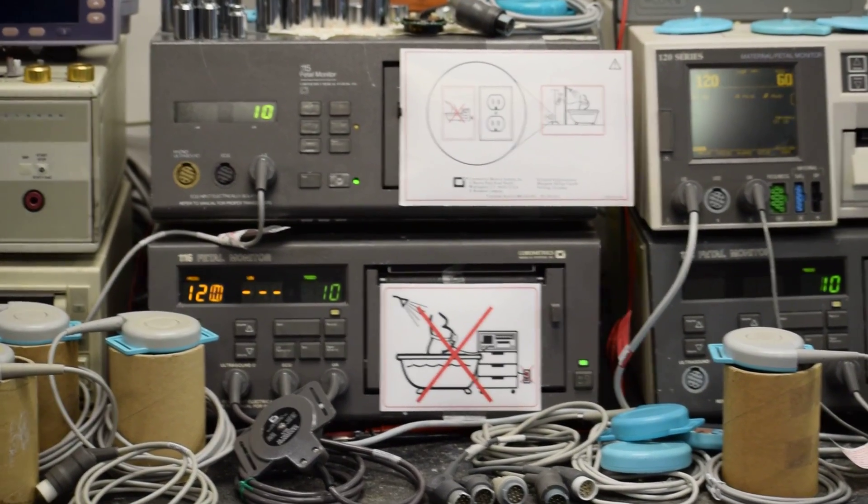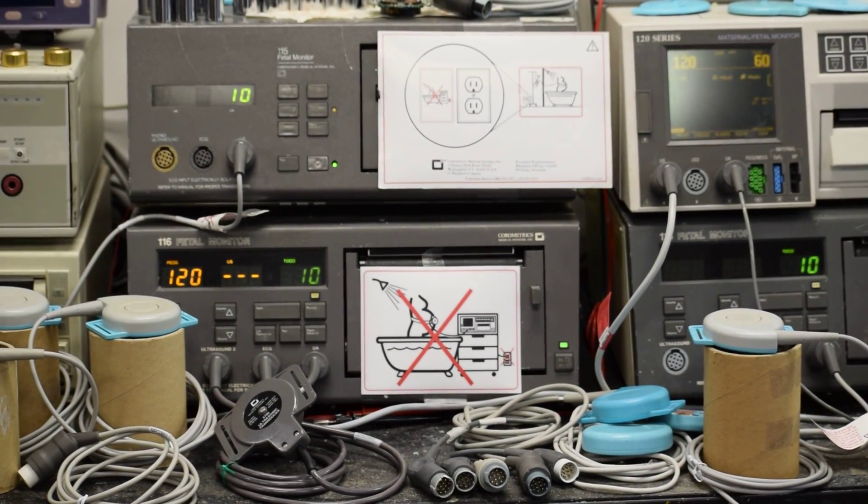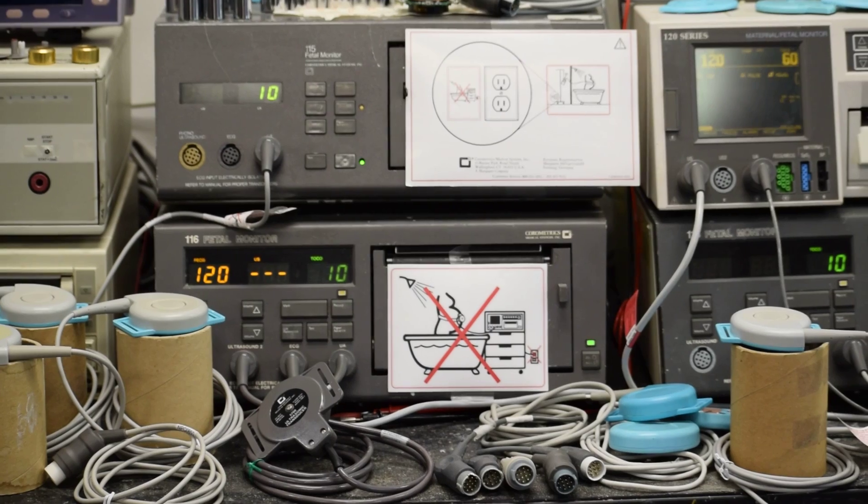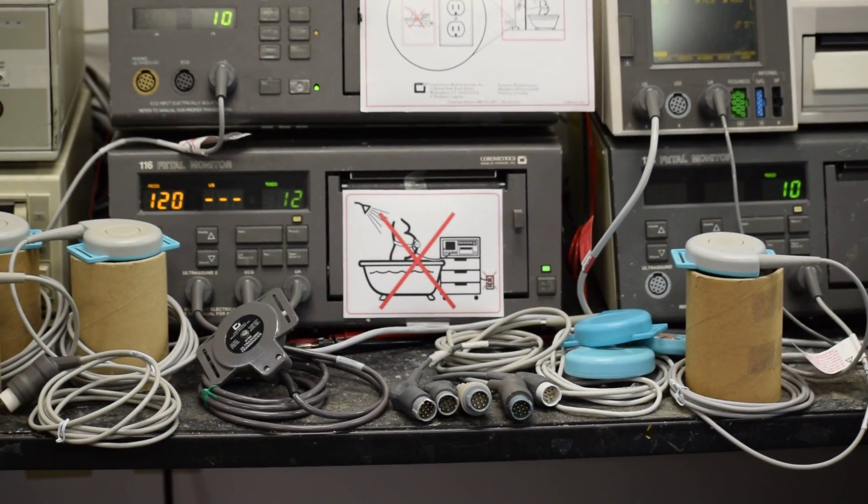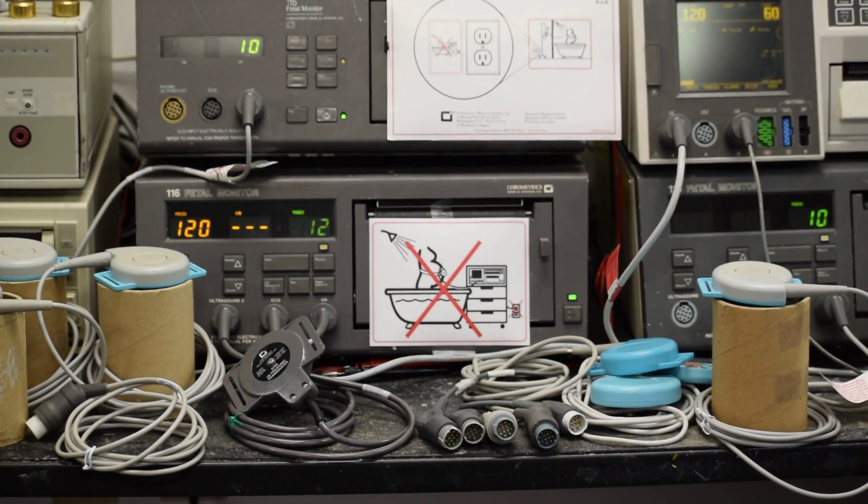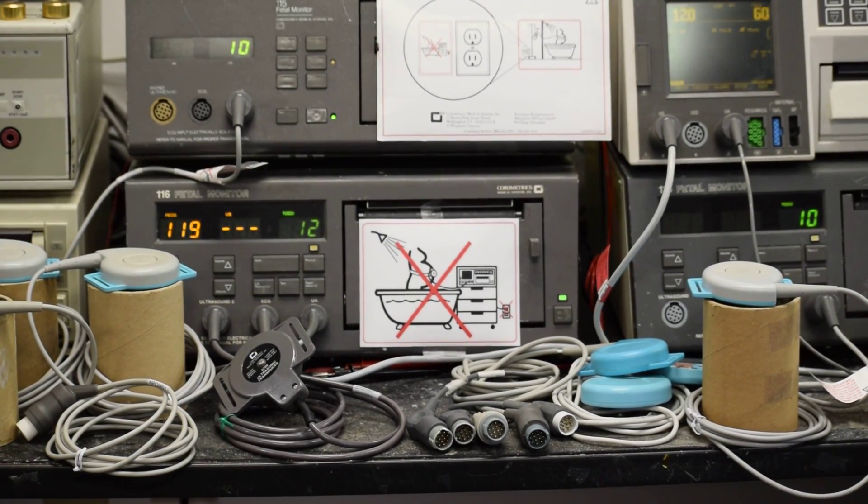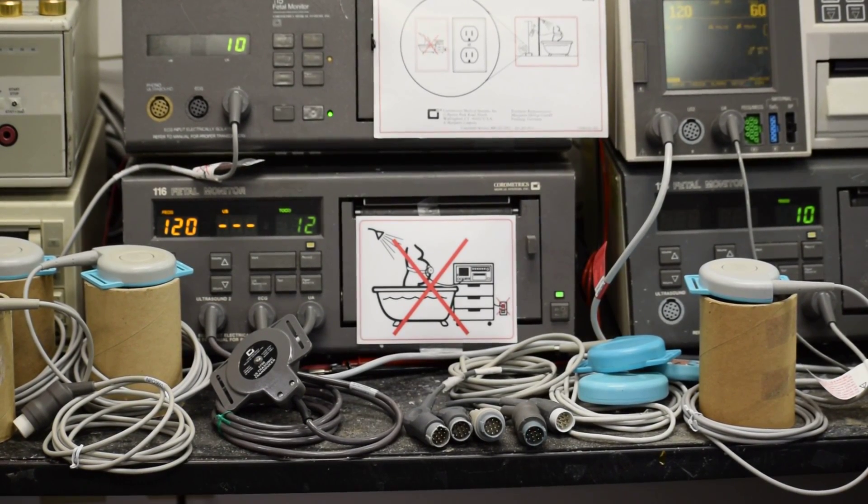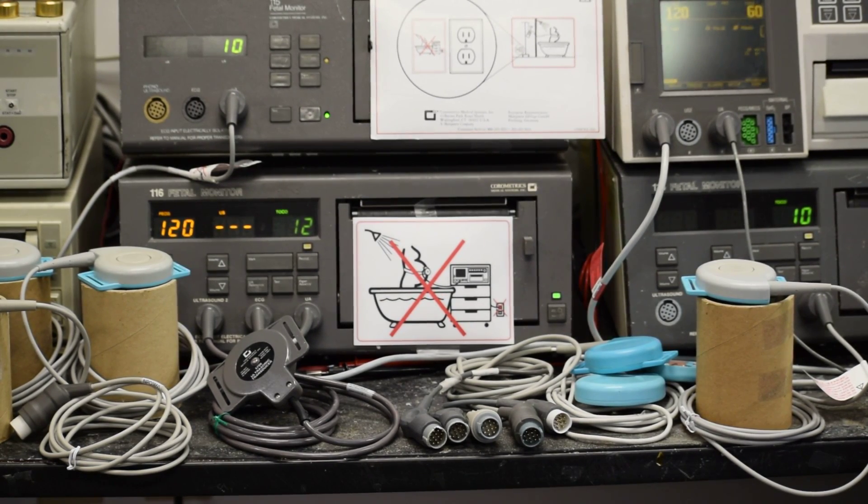Any medical device patient monitor is of no use if the front end sensors, patient cables, and transducers don't function to exact OEM specifications. Well calibrated and maintained equipment is needed for consistent throughput. In order to get consistent performance out of any medical equipment, you have to have the complete setup to OEM specifications, tested and maintained.